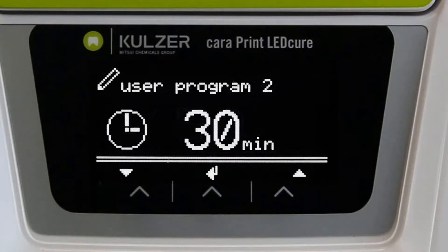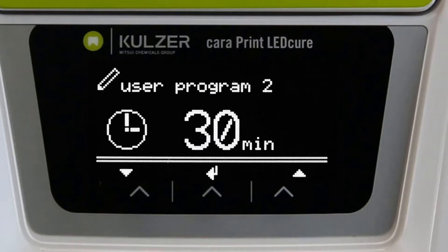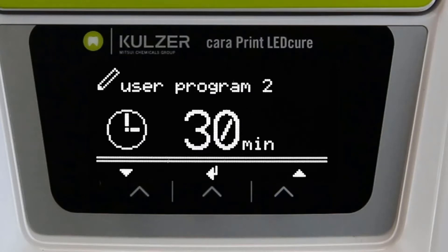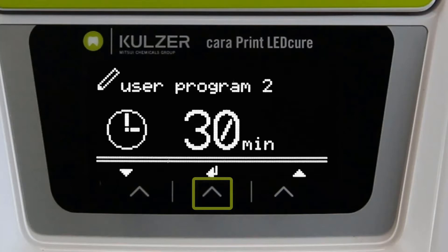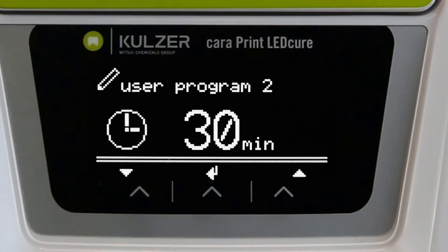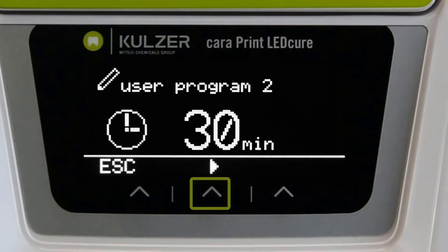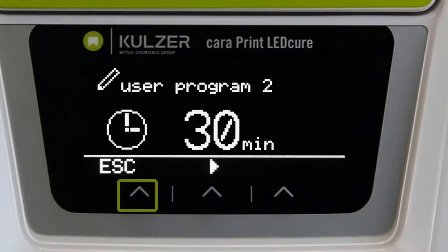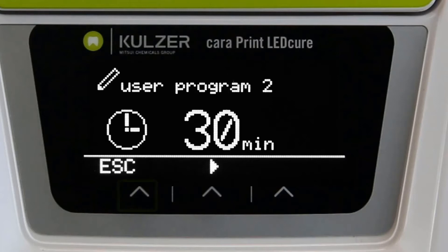Thirdly, the exposure time is set between 1 and 30 minutes. Press the center button to confirm the last entry and return to the program. Here you can start the program again by pressing the middle button, or you can return to the program overview by pressing escape.